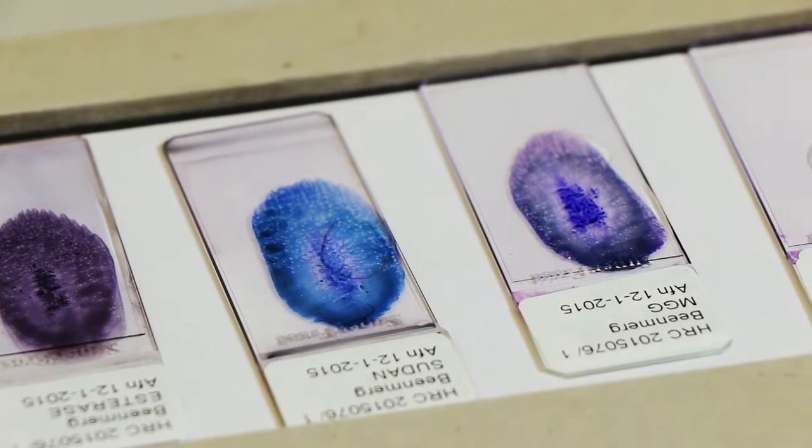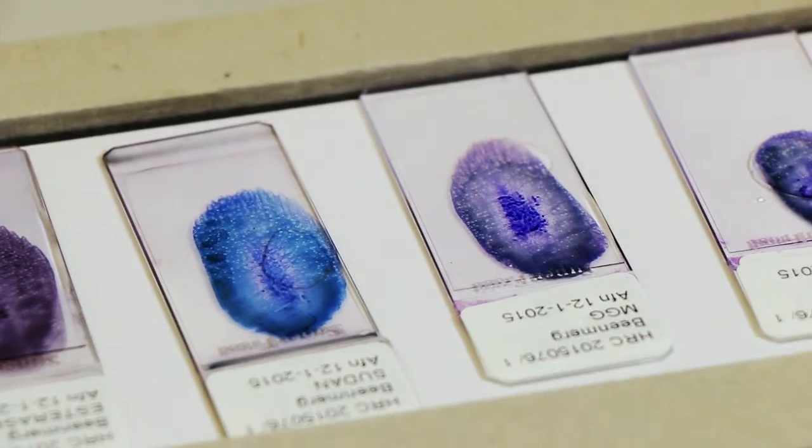My work is to examine bone marrow and peripheral blood slides. I'm working for the Hematology Review Committee, a European committee that reviews the slides of bone marrow and peripheral blood for people who have leukemia or myelodysplasia diseases.